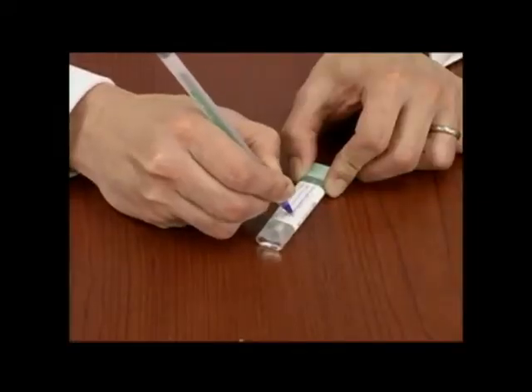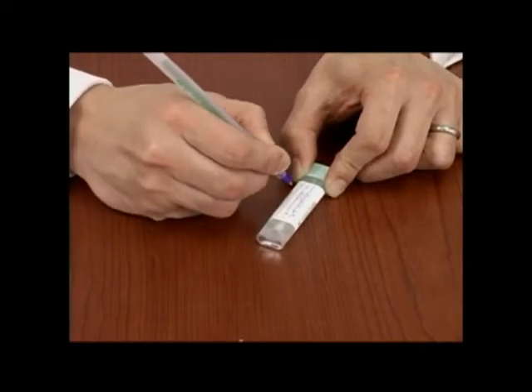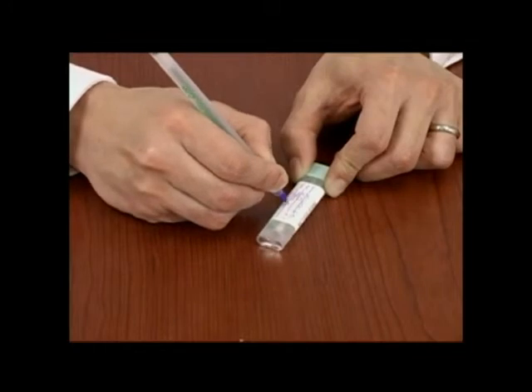You can write your name, your age, and the date of the test, or you can use the sticker that your doctor's office may give you to label your sample.